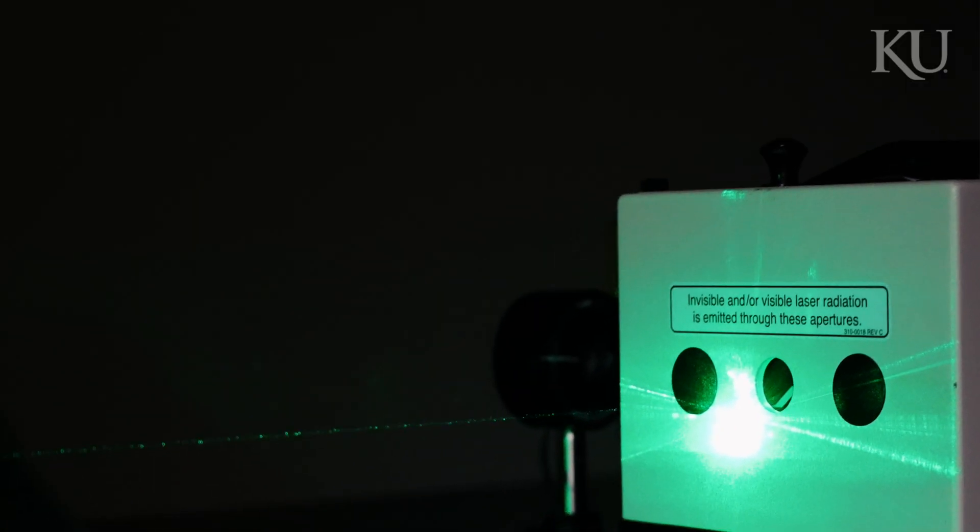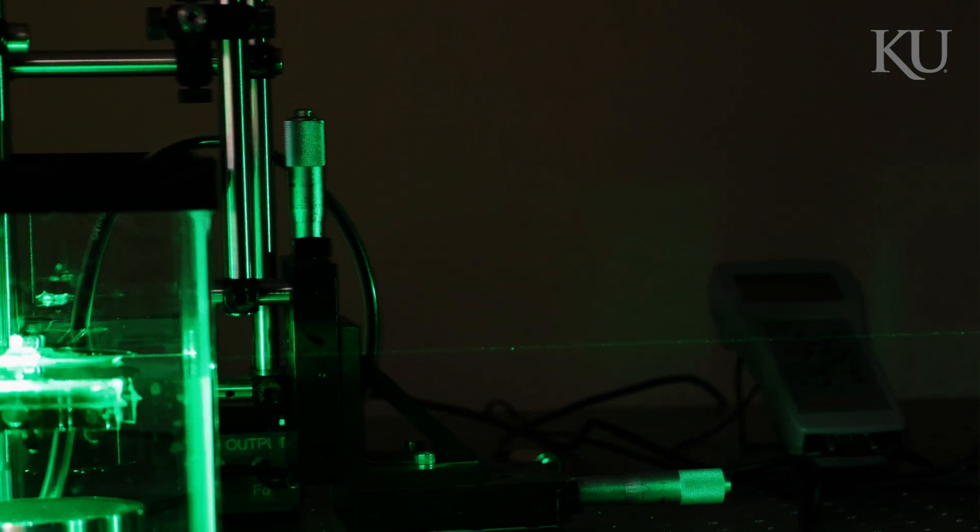PUT is the patented technology of our lab and it's very interesting because it uses both laser and ultrasound together. It is capable of contracting blood vessels after treatment, so we are now trying to analyze what parameters are responsible for that effect.